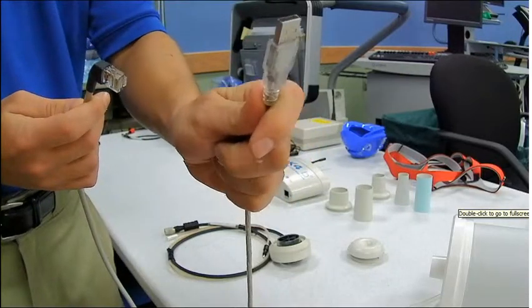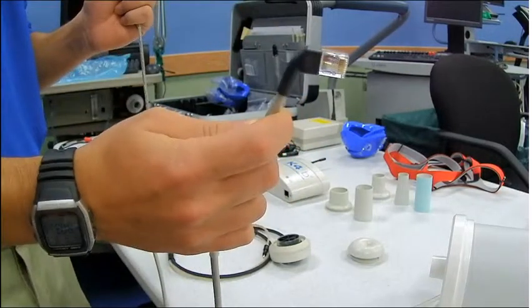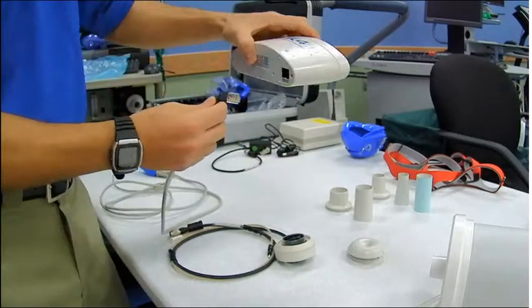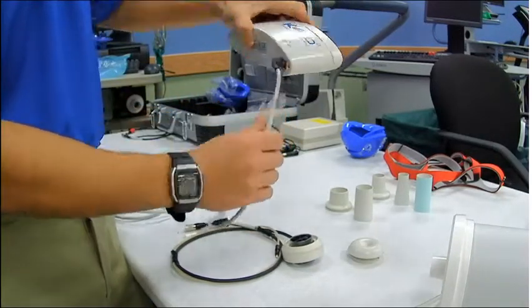Here's the USB side of the connector and the Ethernet side of the connector. What we're going to do is plug the Ethernet side into the K4 portable unit.